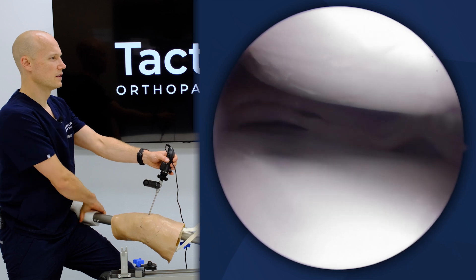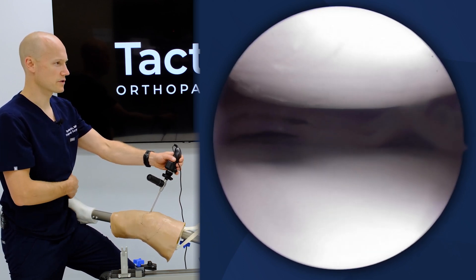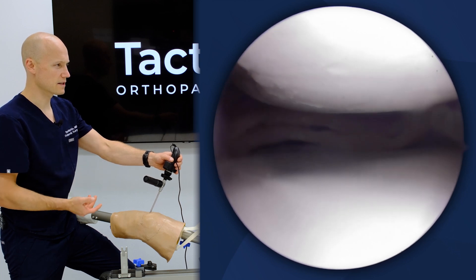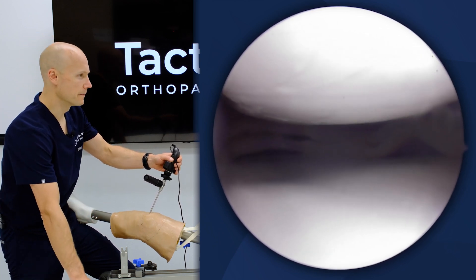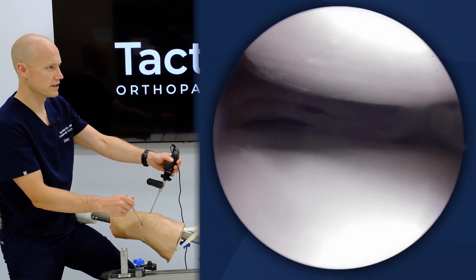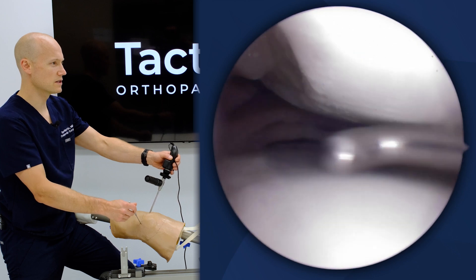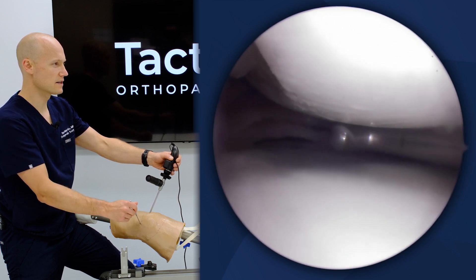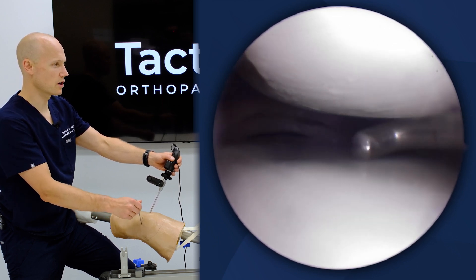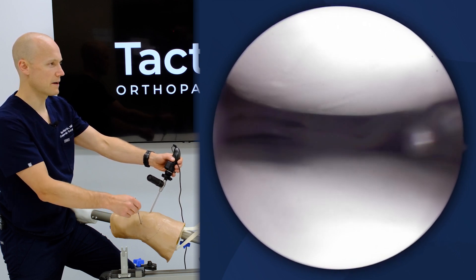As you can see, I've got the foot positioned on my hip and I'm externally rotating this hip to gain access to the medial compartment. This is designed by surgeons for surgeons so that we can do our medial compartment work in a relatively tight environment. You can see the access and how much the medial femoral condyle and the tibial plateau is gapping.